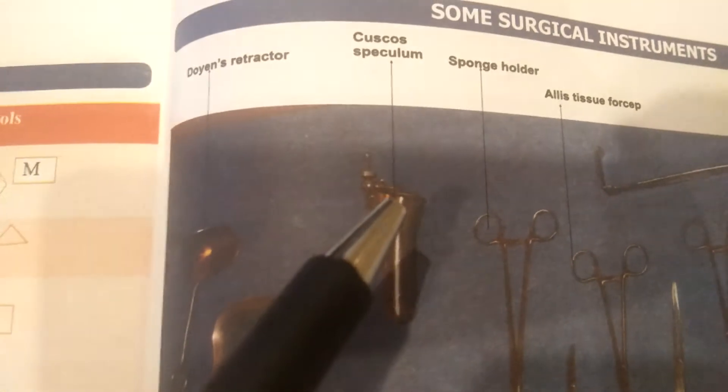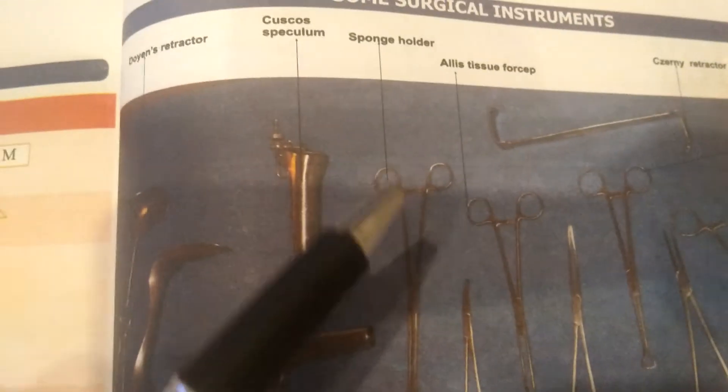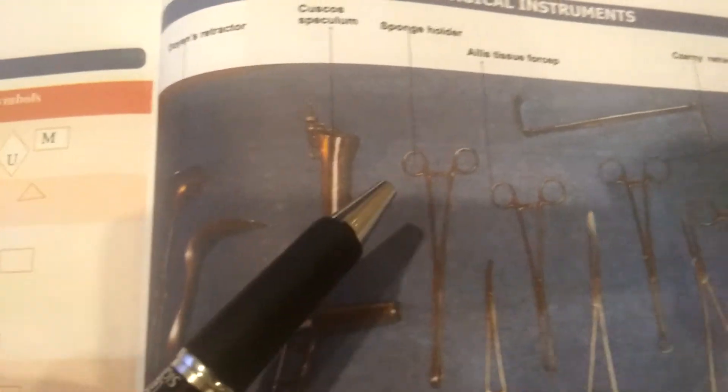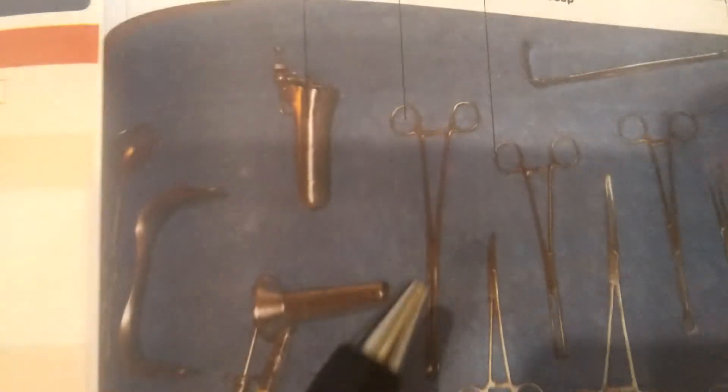See this one — this is known as Cusco's speculum. Now see this — those who are working in a surgery department know this is a sponge holder. This one is a sponge holder.